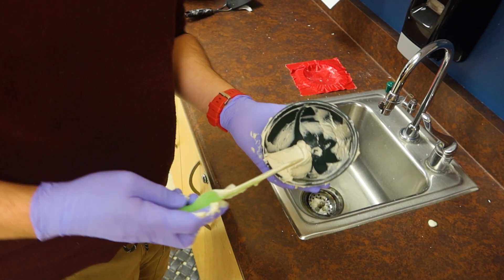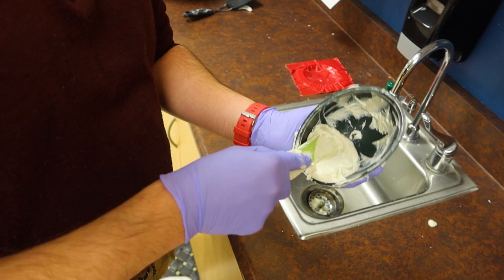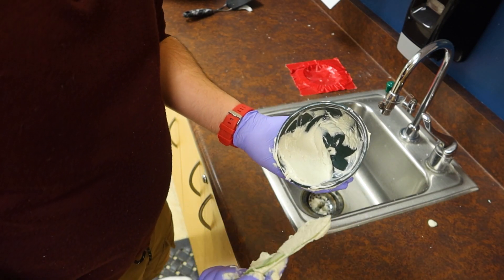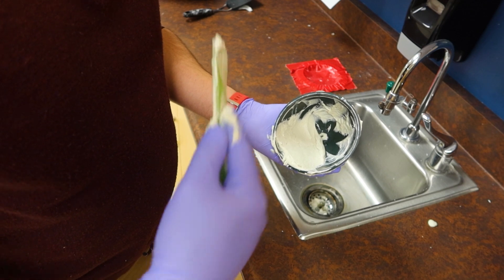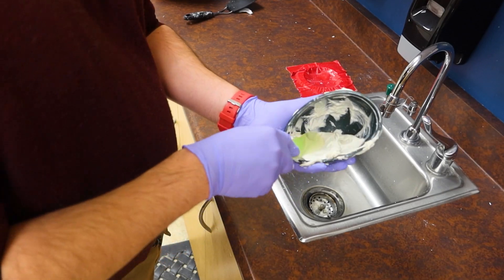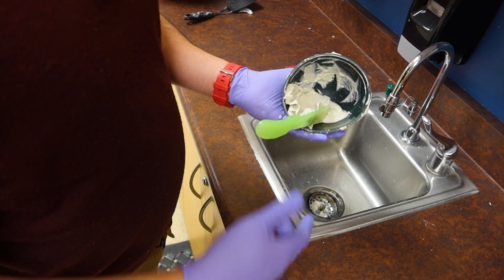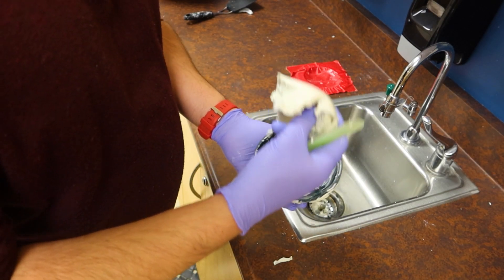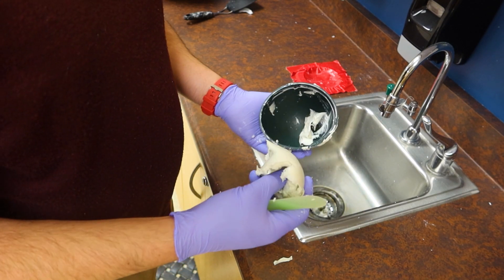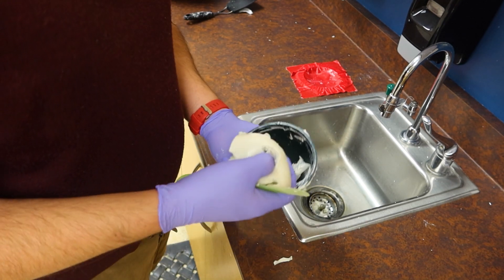The main thing I don't want you doing is going in there and sitting there patting it, because if you play with it like that it's just going to get hard on you. Make sure you get your stuff mixed — should take about 15 seconds or so when you're experienced enough — then move on to loading. If you're still mixing and all of a sudden it's just not pushing anymore, you've crossed over the point of no return where it's starting to be hard as playdough. You've wasted your patient time and material, and now you have to do the sad walk to the sink, rinse it out, and start all over again.